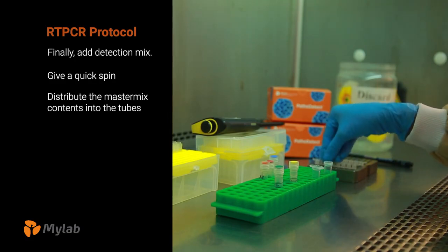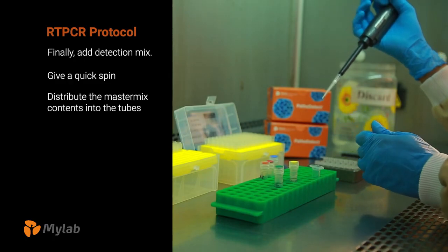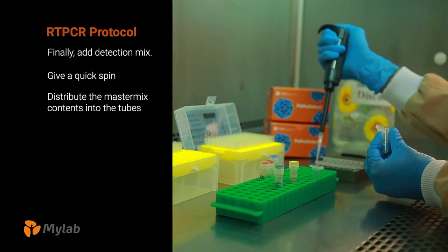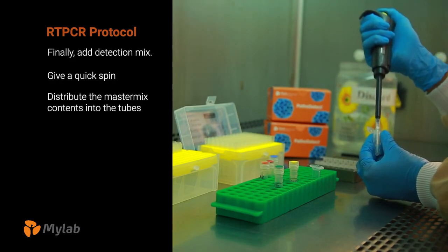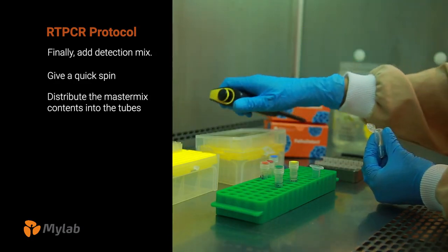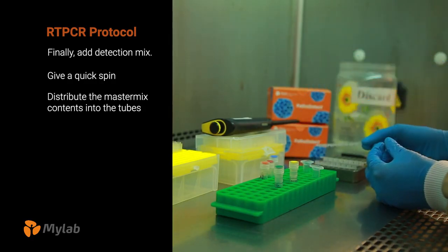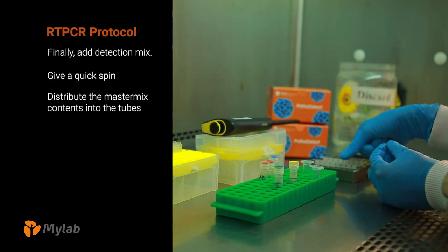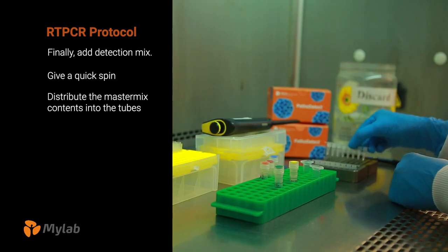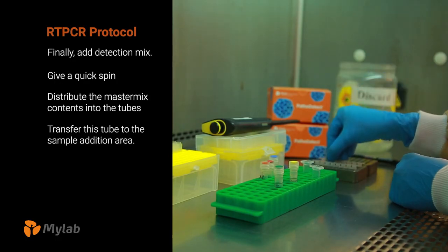Distribute the master mix contents into the tubes or plates, whichever are being used. Then close the lid of the strips or the plate. Make sure filled tubes are sealed. Transfer the tube to the sample addition area.